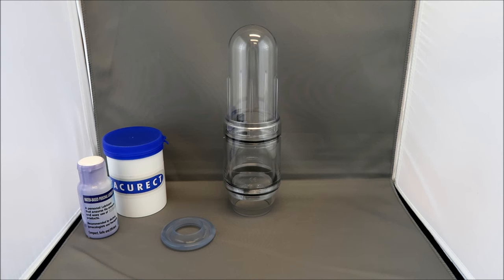This is the Vacurect. The Vacurect is a vacuum erection device that mimics the natural erection process by drawing the blood into the penis.